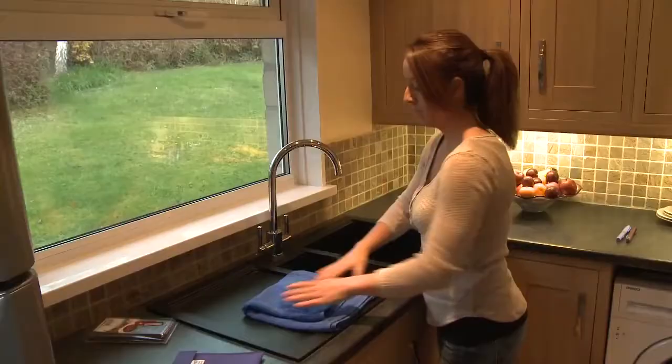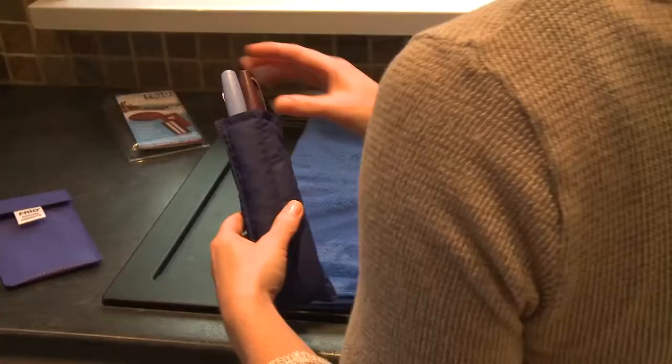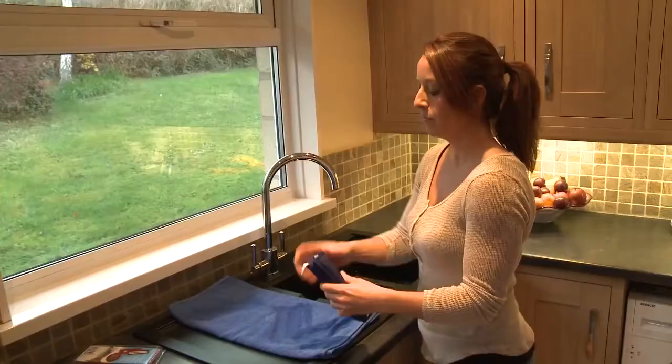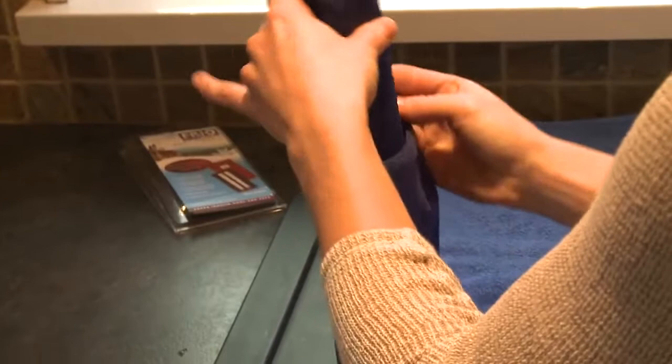You can now insert your medication and place your wallet inside the cover. The Frio Wallet has been independently tested and certified regarding its effectiveness. It can be reactivated simply by placing in water again when required and can be used repeatedly.